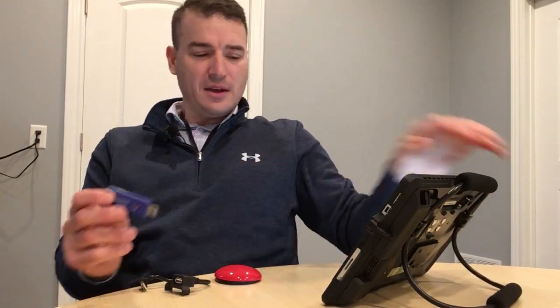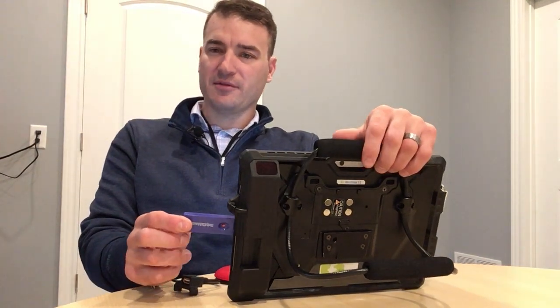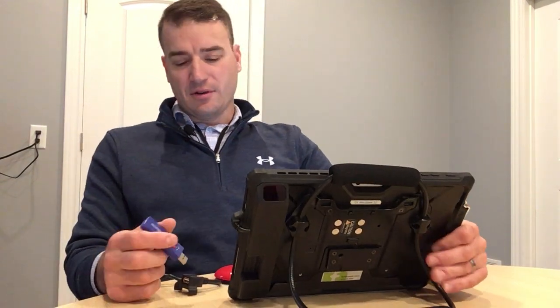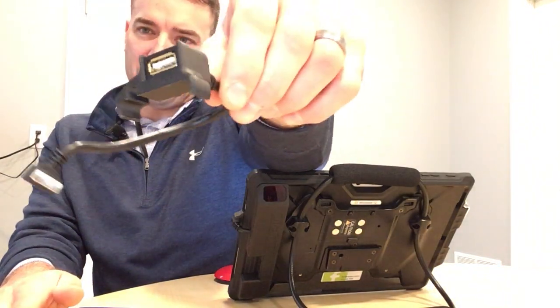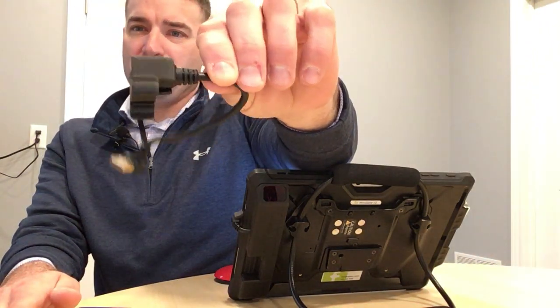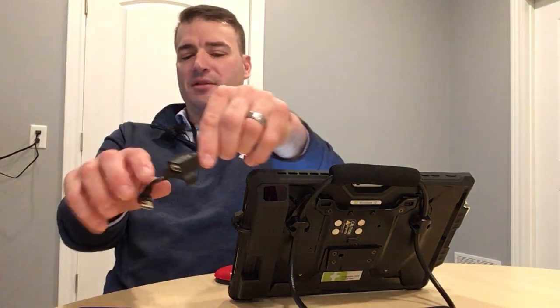One of the challenges with switch access is that the USB dongles are fairly long, and if you were to plug them into the side of the tablet, they kind of hang out, or if they're plugged into the back, they're hanging out and could be damaged. So what we've done is designed this little port relocator system, which is nothing more than a male-to-female extension cable with a special saddle clip that saddles onto the back of the ADAPTA module.